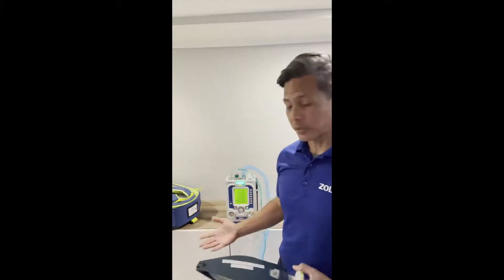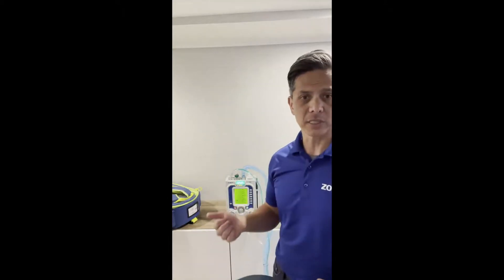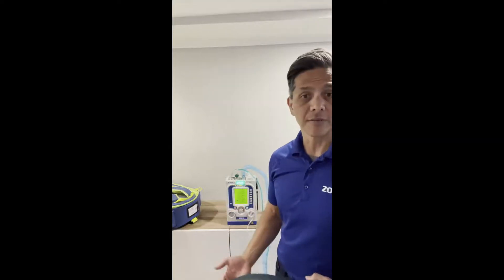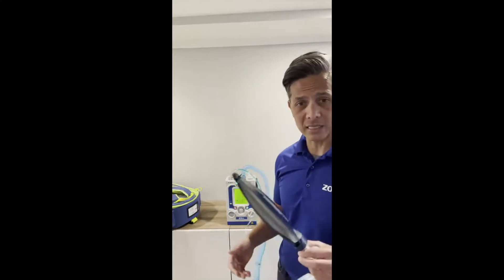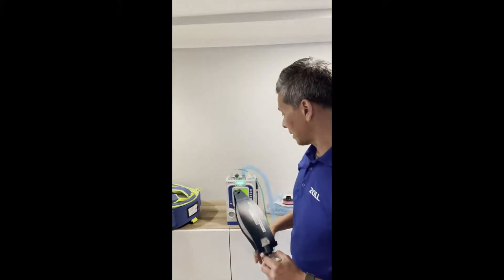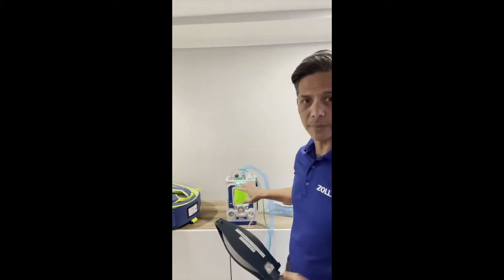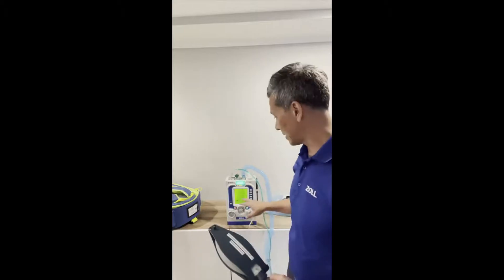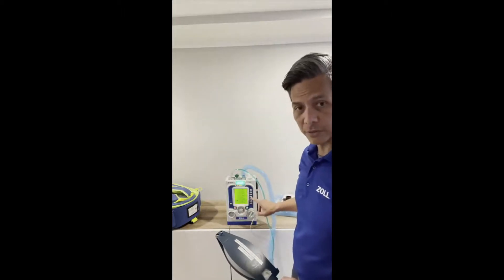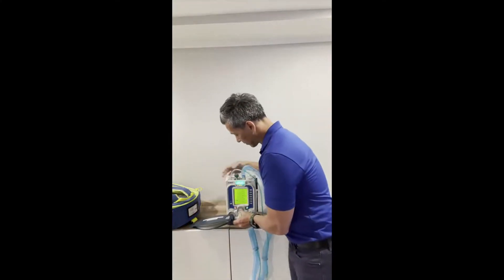These are Zoll's default settings for the adult mode: FiO2 of 21%, PEEP of 5, volume of 450 cc's, 12 breaths per minute, and an I:E ratio of 1:3. Not saying you should always use these, but it's a great fast go-to. Everything you need lives right here on the side — this is not a ventilator where you're searching for buttons or wondering if something is highlighted. It's all right there on the side.